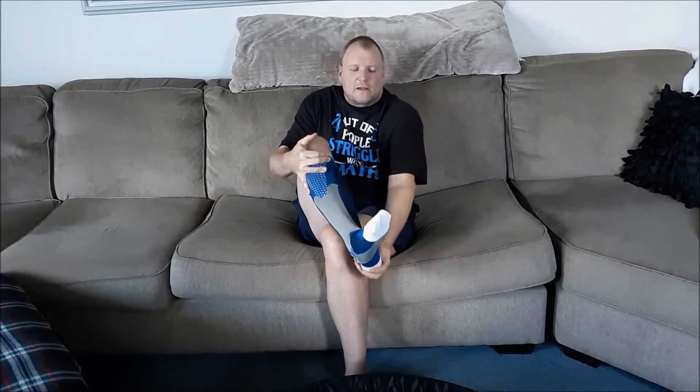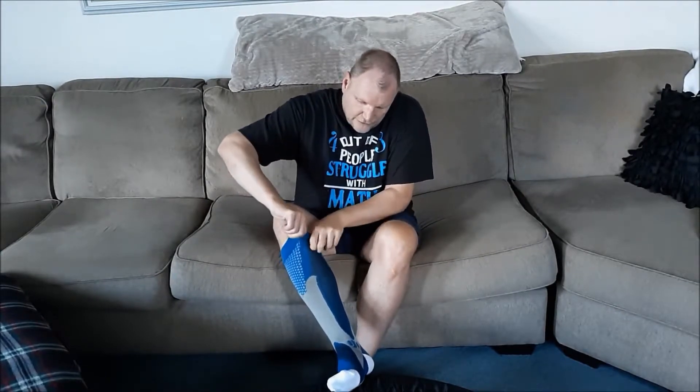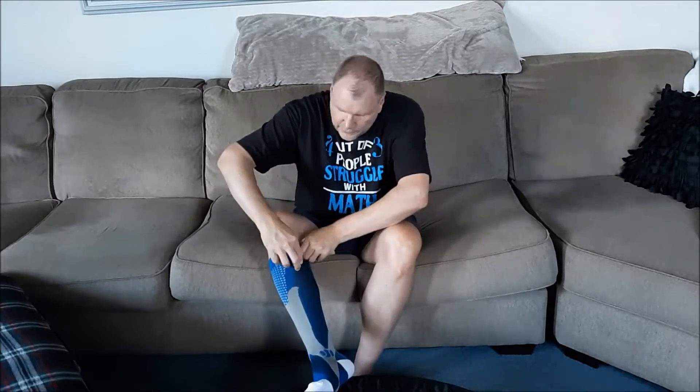I'm a size 12, so could you go a little bigger — maybe they'll stretch to a 13, I don't know about a 14. I think that's about it, but they're nice and tight, and that's what you want with these things. They're going to compress those veins and those nerves. So overall they're pretty thick — not real thin.